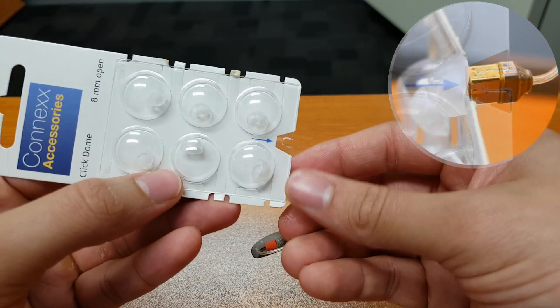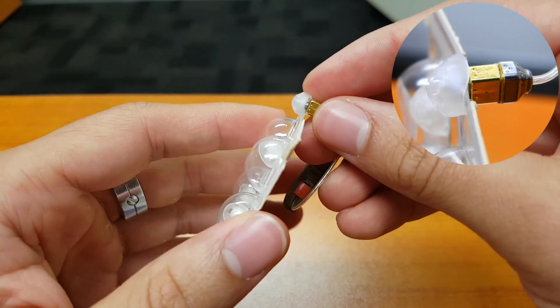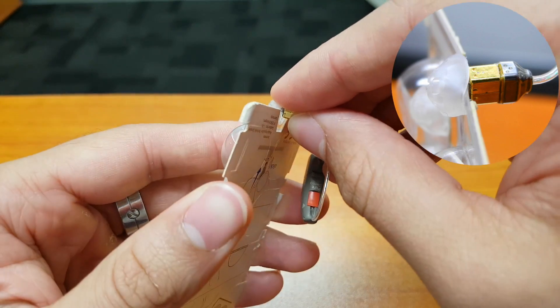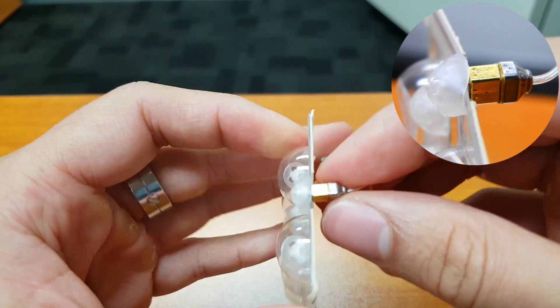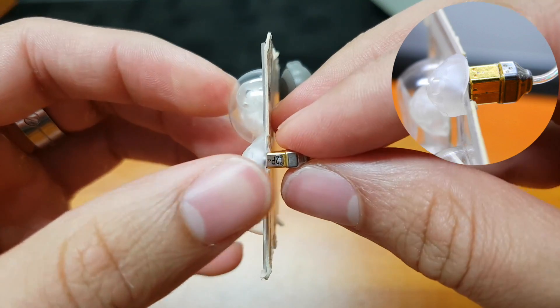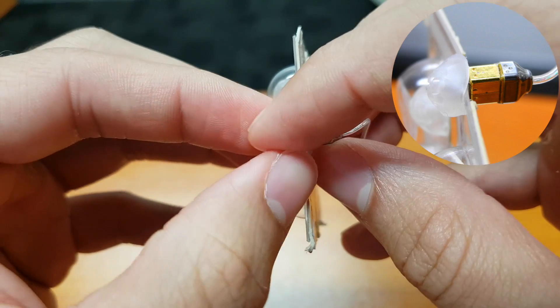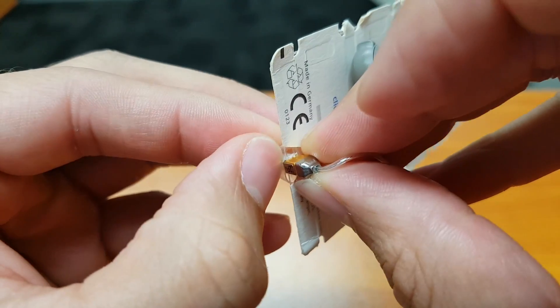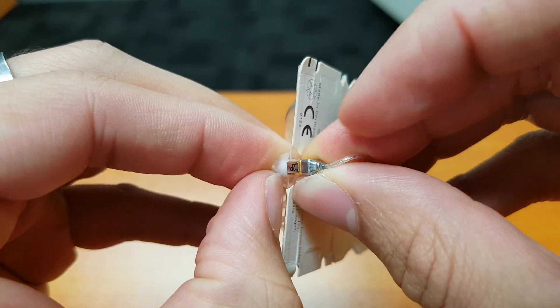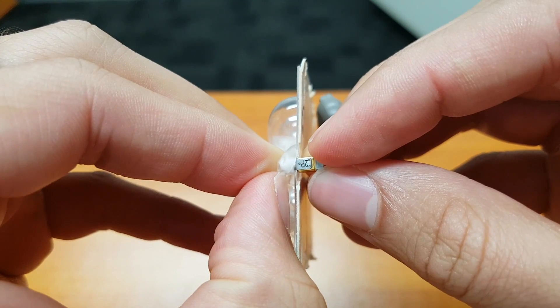What we'll need to do is essentially place the speaker in between that wedge. If we peel that back, you can see that is wedged in between.